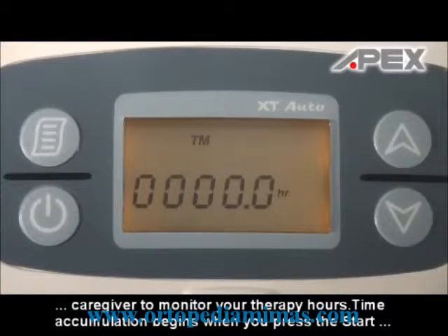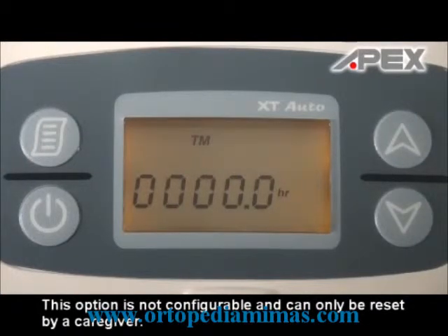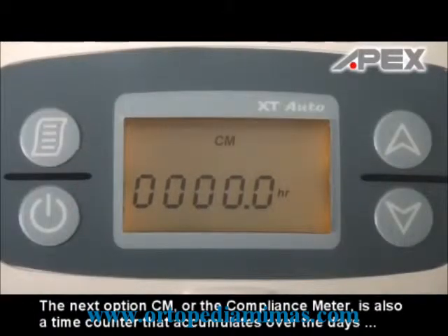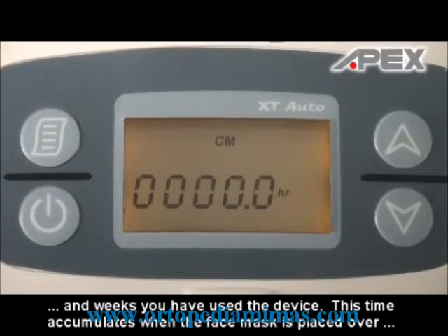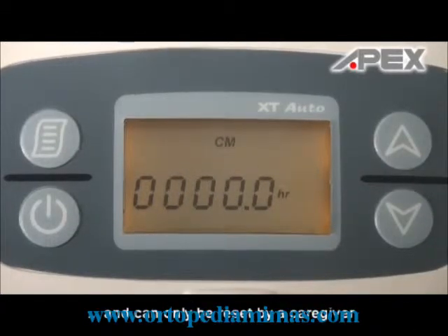Time accumulation begins when you press the Start button to start airflow and stops when you press the Start button again to stop the airflow. This option is not configurable and can only be reset by a caregiver. The next option, CM, or the compliance meter, is also a time counter that accumulates over the days and weeks you have used the device. This time accumulates when the face mask is placed over the face, creating a resistant pressure that triggers this time counter. This option is also not configurable and can only be reset by a caregiver.